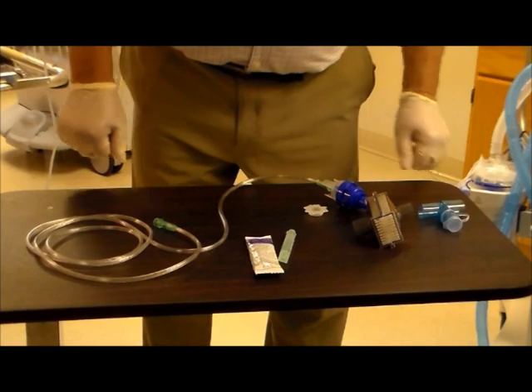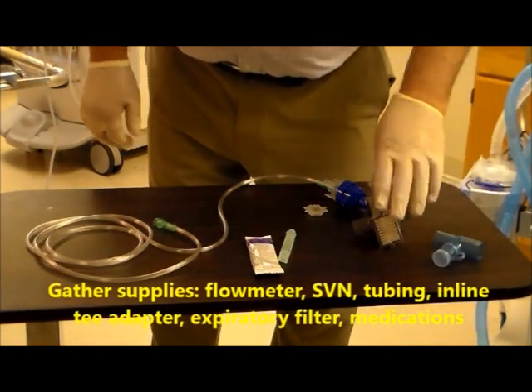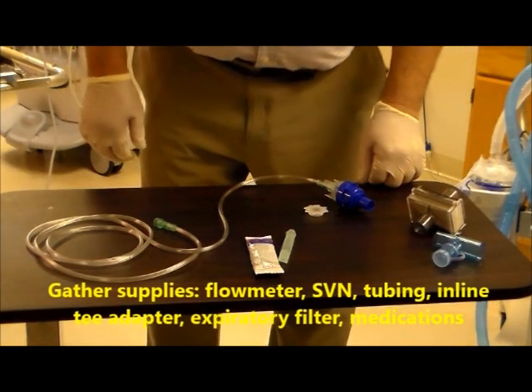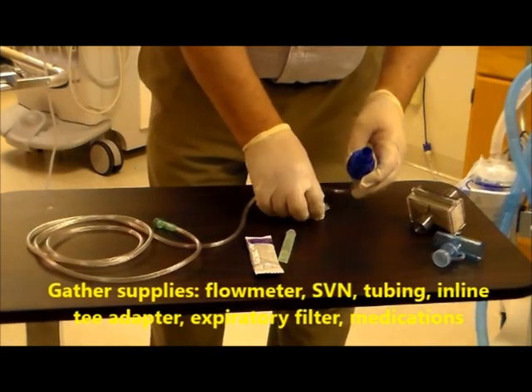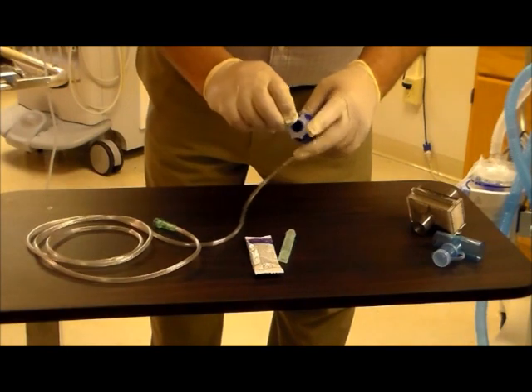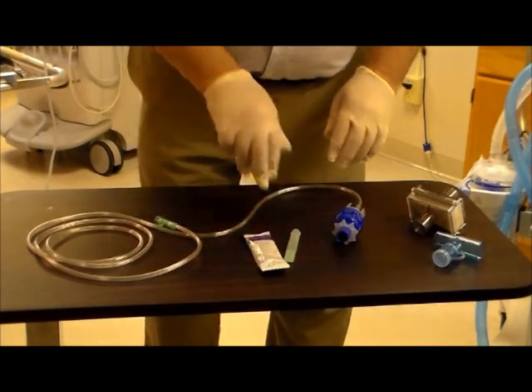At this point you want to make sure you gather your equipment. Equipment would include a valve T, a pall filter to prevent the medication from getting into the exhalation side of the ventilator, your nebulizer, and the little white star adapter that will sit on top. Additionally you want to grab your medication and saline if you need it.